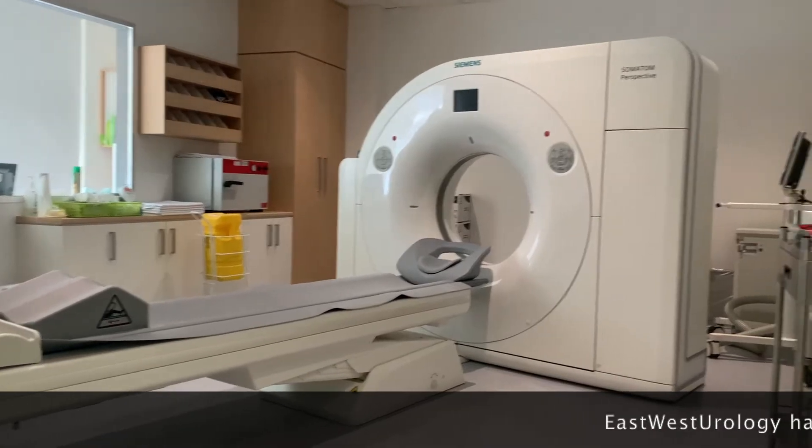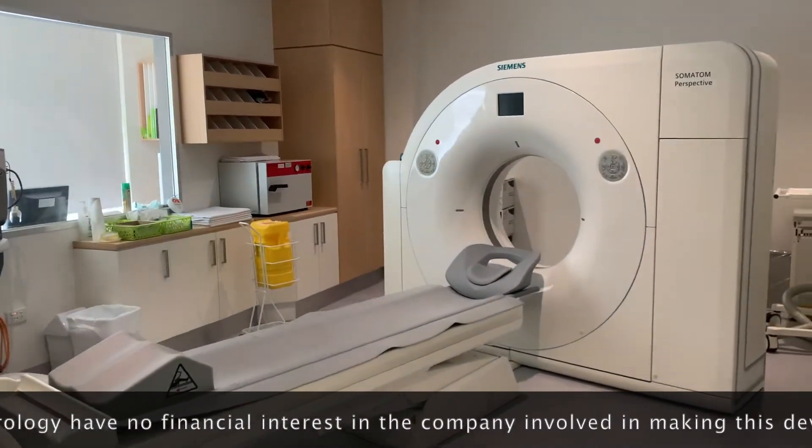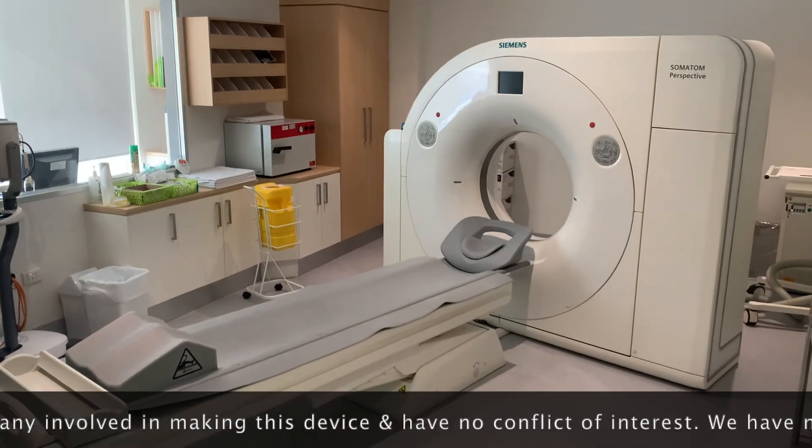CT scanning is used in many surgical specialties and particularly in urology. We use it for the investigation of kidney stones, for cancer diagnosis and staging, and more recently we've been using PET CT scanning with PSMA. This is a special kind of scan that looks for prostate cancer that may have spread beyond the prostate. CT is quick, easy, and painless, and is not claustrophobic like an MRI scan.